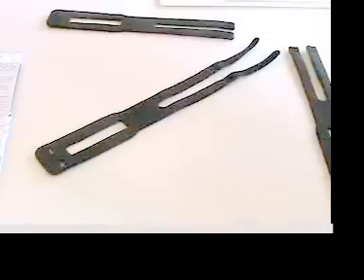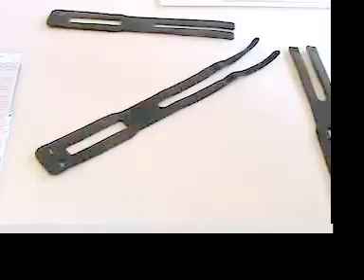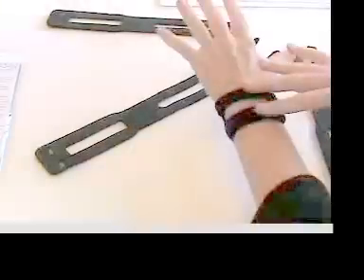What is also really important with this splint is that it has to be adjusted regularly. If you're sleeping, the adjustment should be nice and soft.